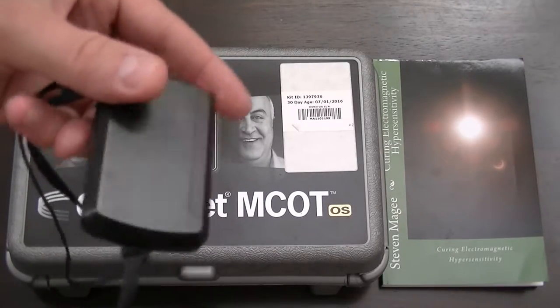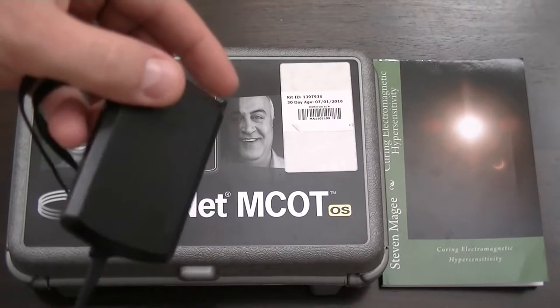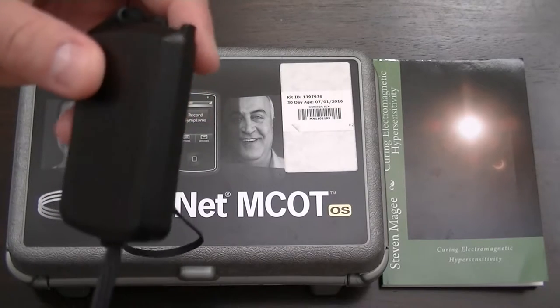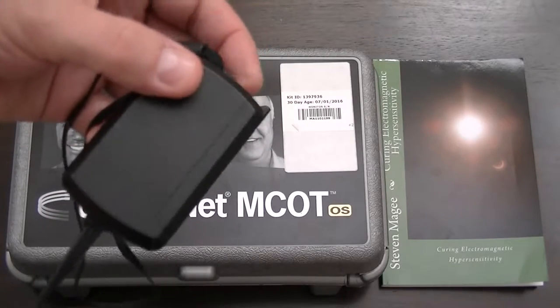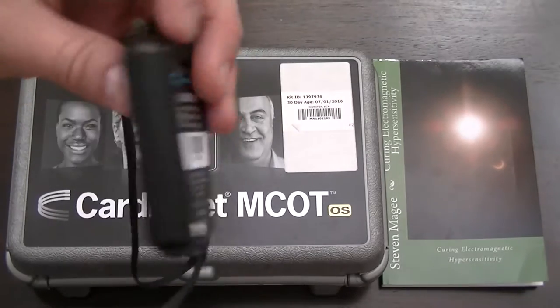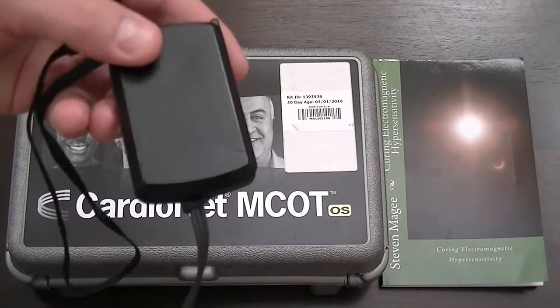It's a wireless radio frequency device. You're probably wondering why I'm wearing a wireless radio frequency device when I had electromagnetic hypersensitivity. That is because the book title says Curing Electromagnetic Hypersensitivity — I actually cleared up my hypersensitivity and can be around this kind of stuff now.